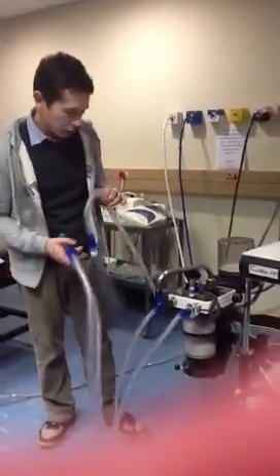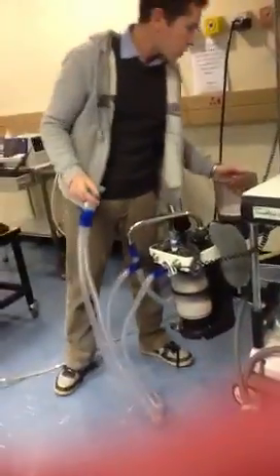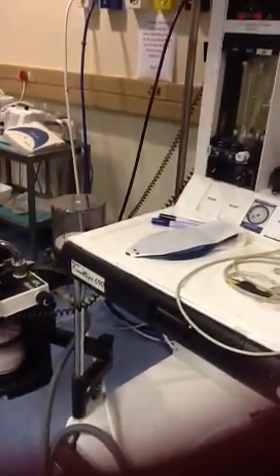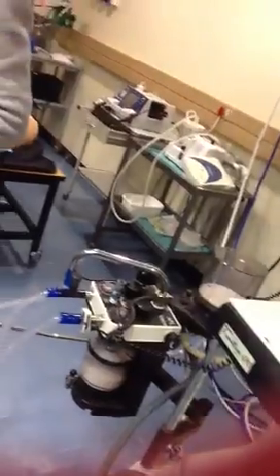Right, so for the low pressure system, what is a bobbin? The small ball, it looks like a ball bearing. Some of these flow meters have rotameters. These things are called rotameters, and some have bobbins, just like a little ball going up and down.